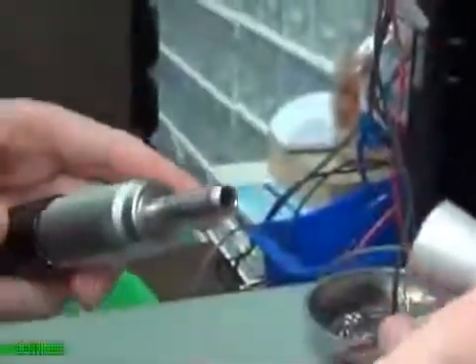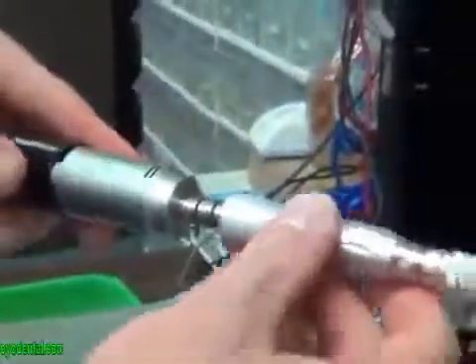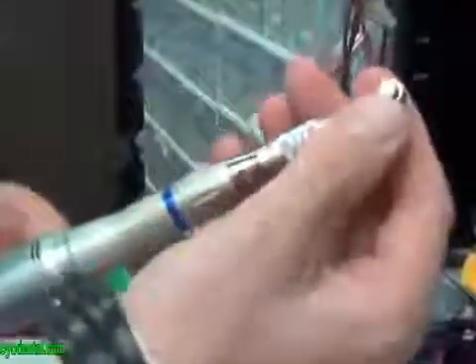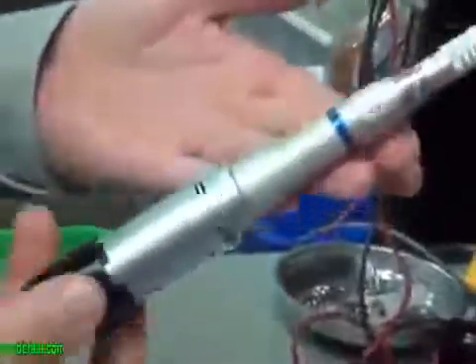From there, simply take your straight nose cone and slide it directly down onto the micromotor. Now once you've assembled the cup, you're ready to polish.